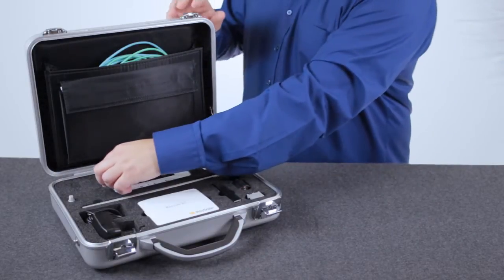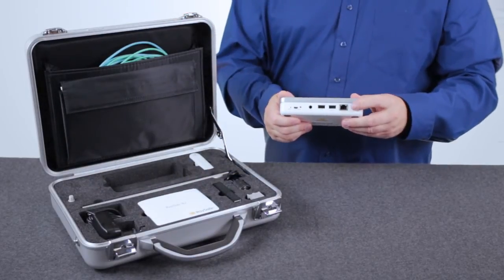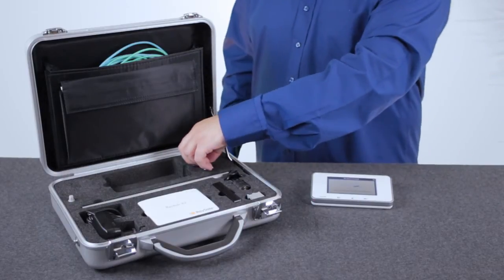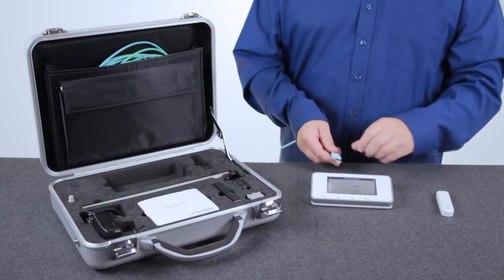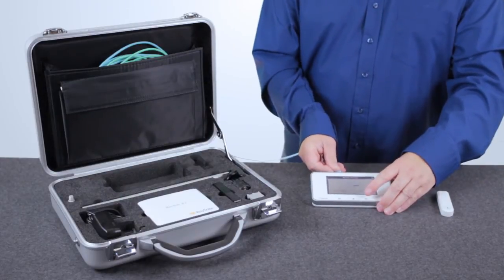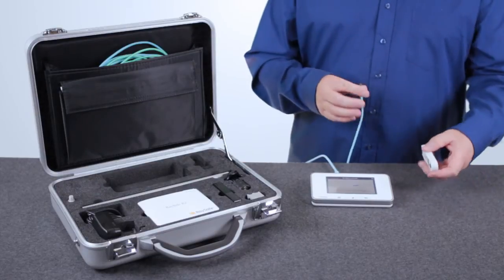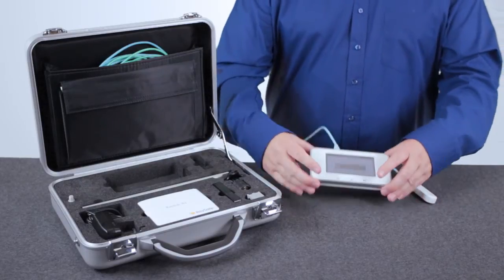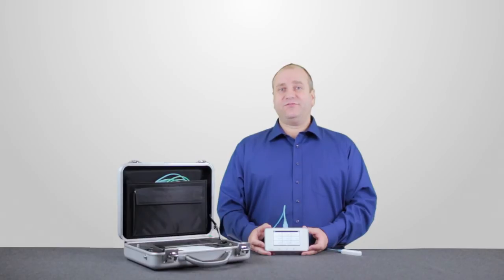And now I want to make the system ready for measurement. I switch on the base unit, I take the sensor, I connect the USB cable to the base unit and the other end to the sensor, and now the system is ready for measurement.